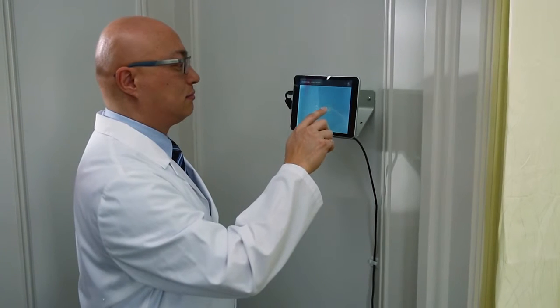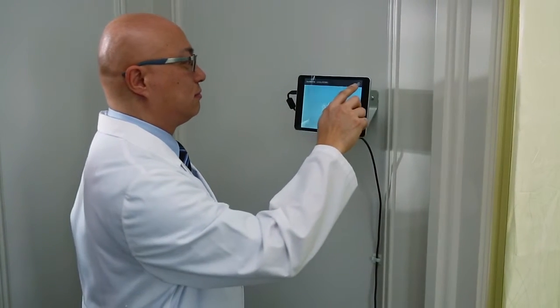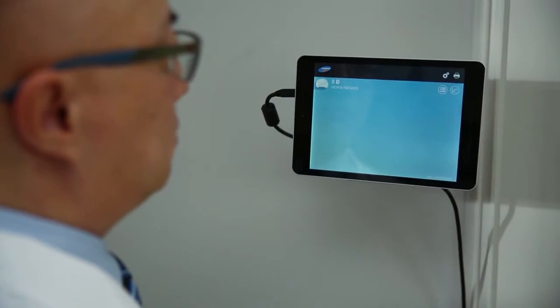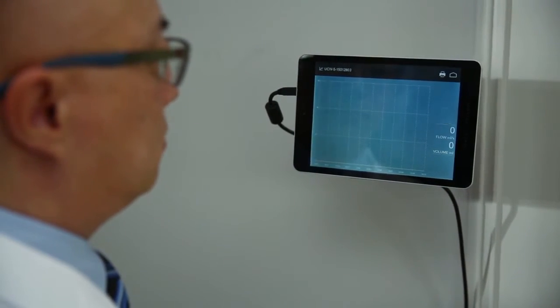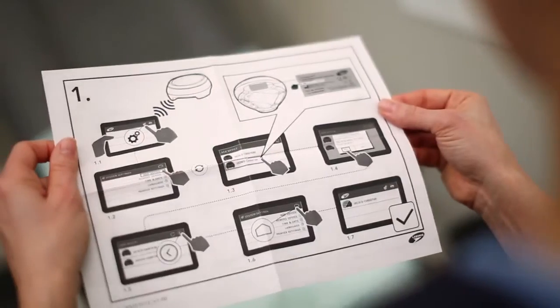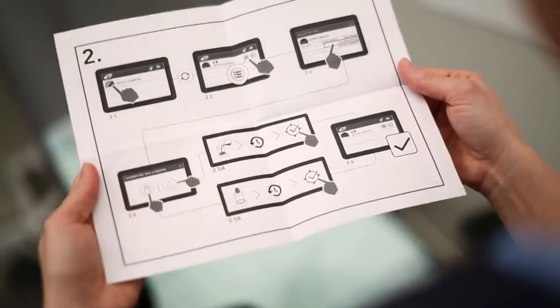To ensure your device is performing at its best, semi-annual calibration is recommended. Calibration is made easy with the step-by-step calibration guide.